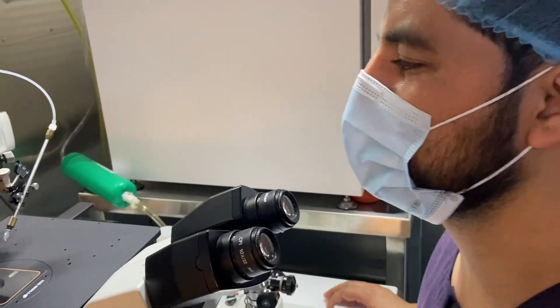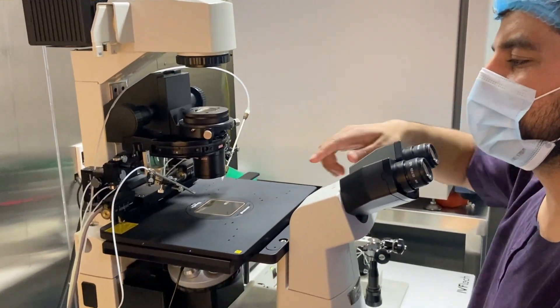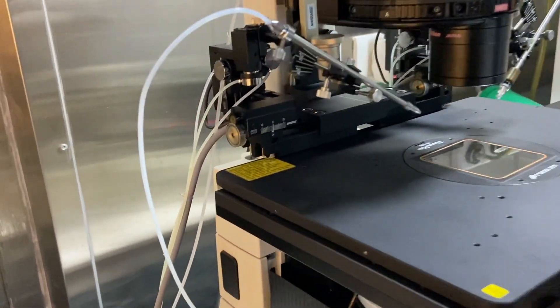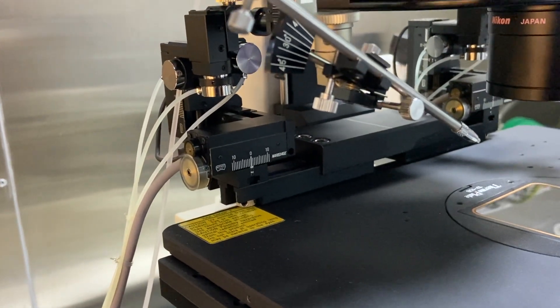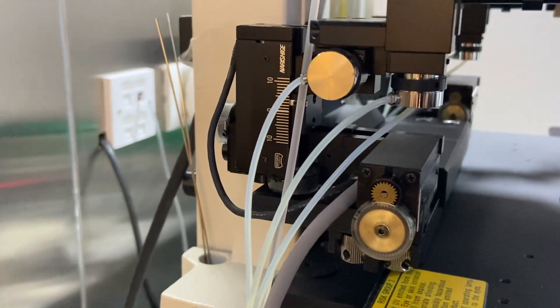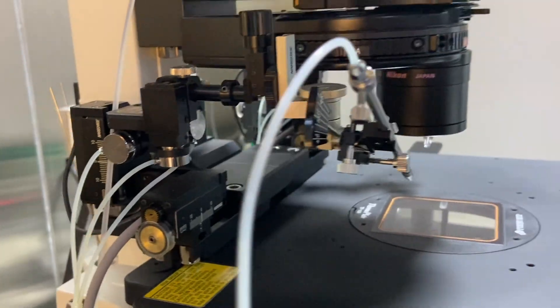Finally, we can use the same procedure in doing our holding needle alignment. So I will move this again. And similarly, I will move it. Everything should be on the zero. So this is a little up. So I am getting it down. Now this machine is in the zero.